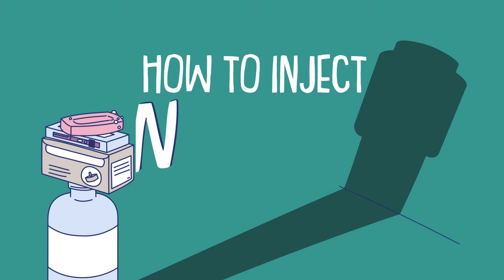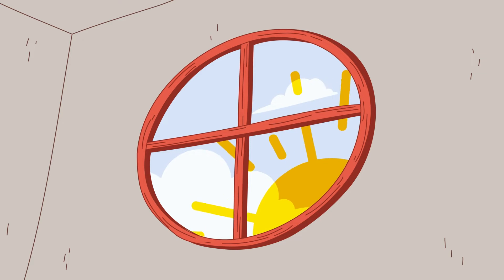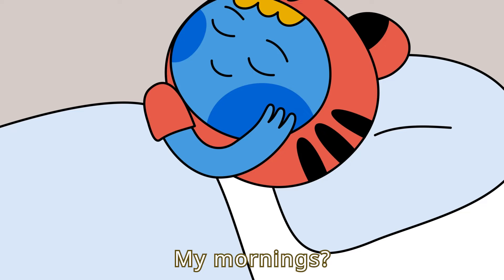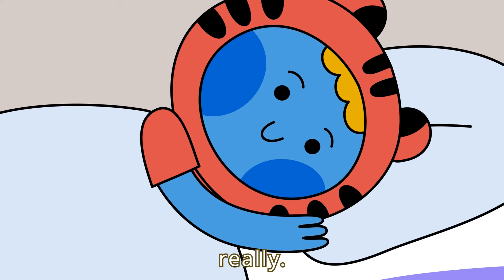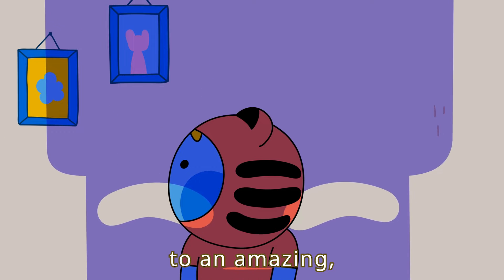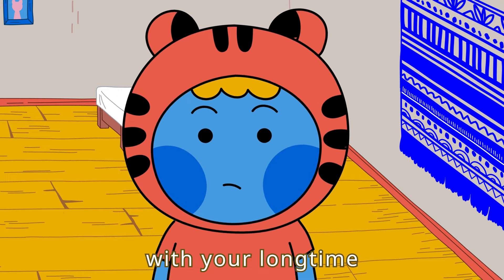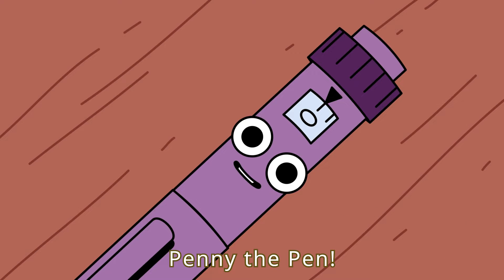How To Inject Insulin With A Pen. My mornings are like most of my friends' mornings, really. Except for... Rise, Betty! Destiny calls you to an amazing, truly spectacular adventure with your long-time loyal companion — Penny the Pen! Ta-da!